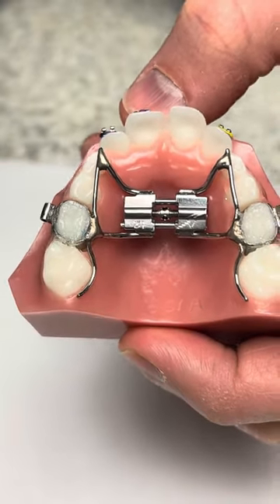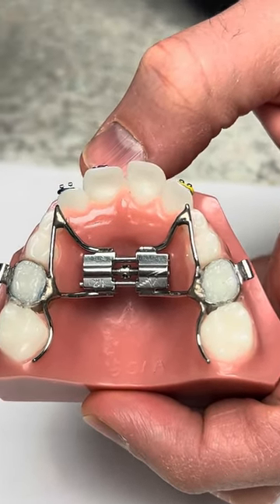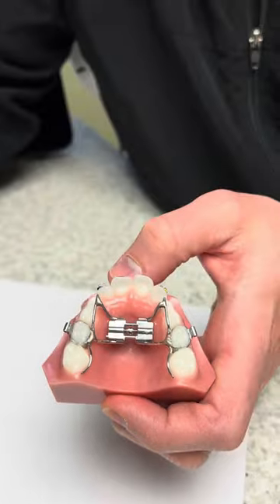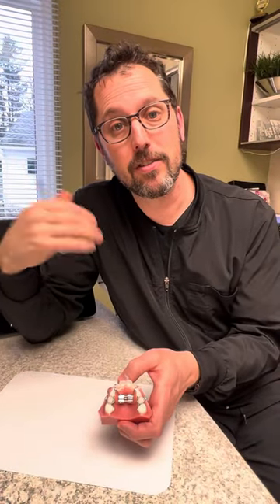If you're applying a lot of pressure to the expander key, you're pushing way too hard. It should generally be very easy to turn that expander and make it turn the way you want it to. That's a simple explanation on how to turn your expander. Thank you, guys.